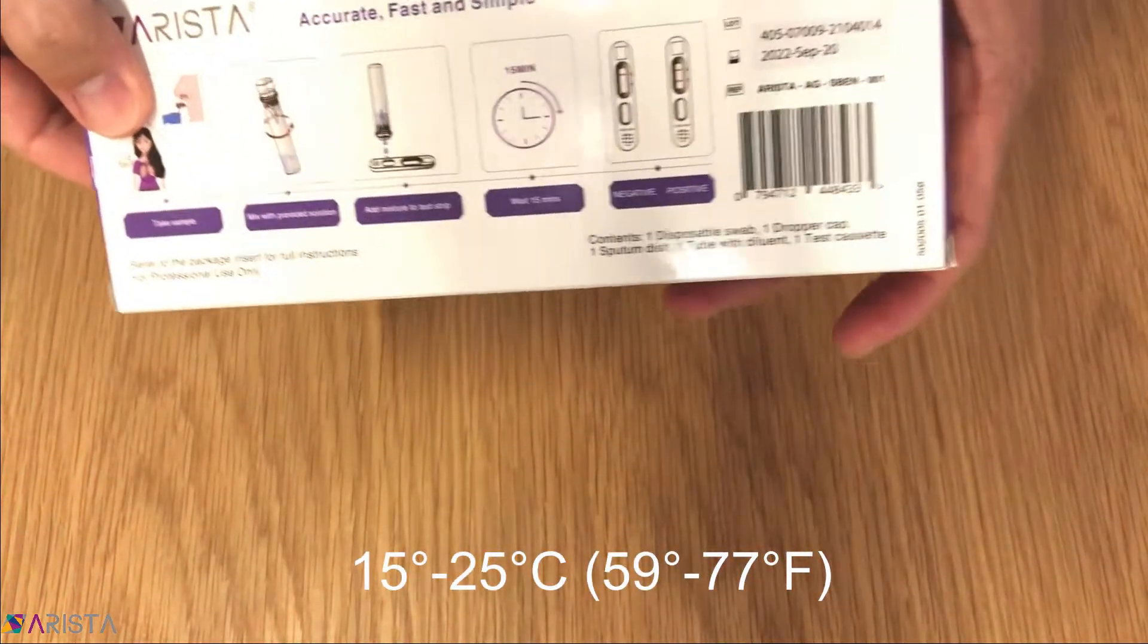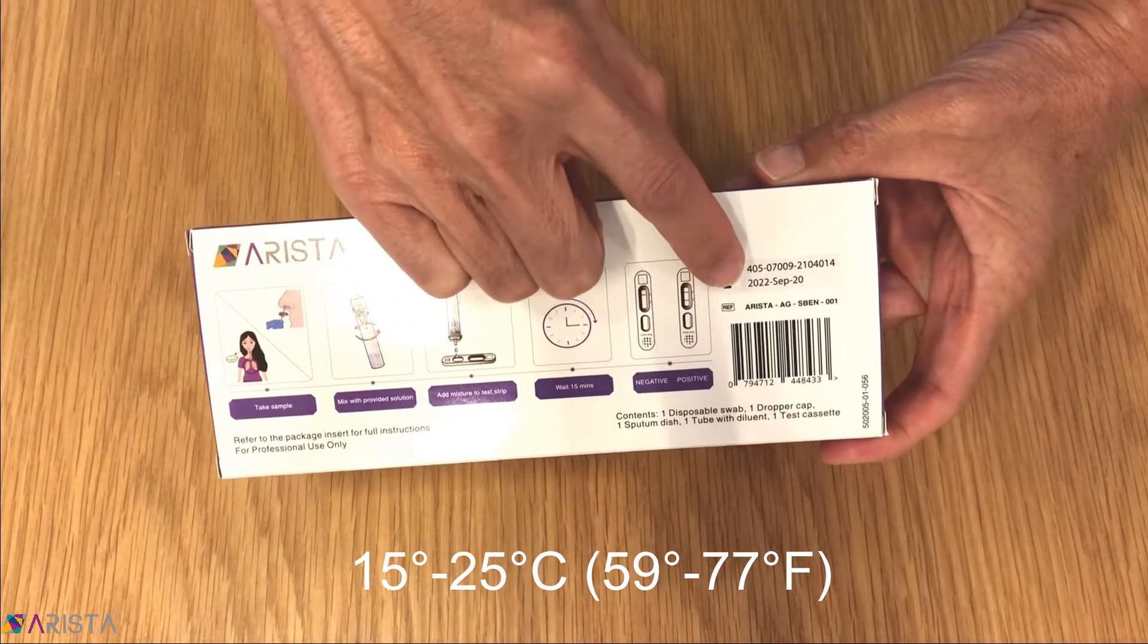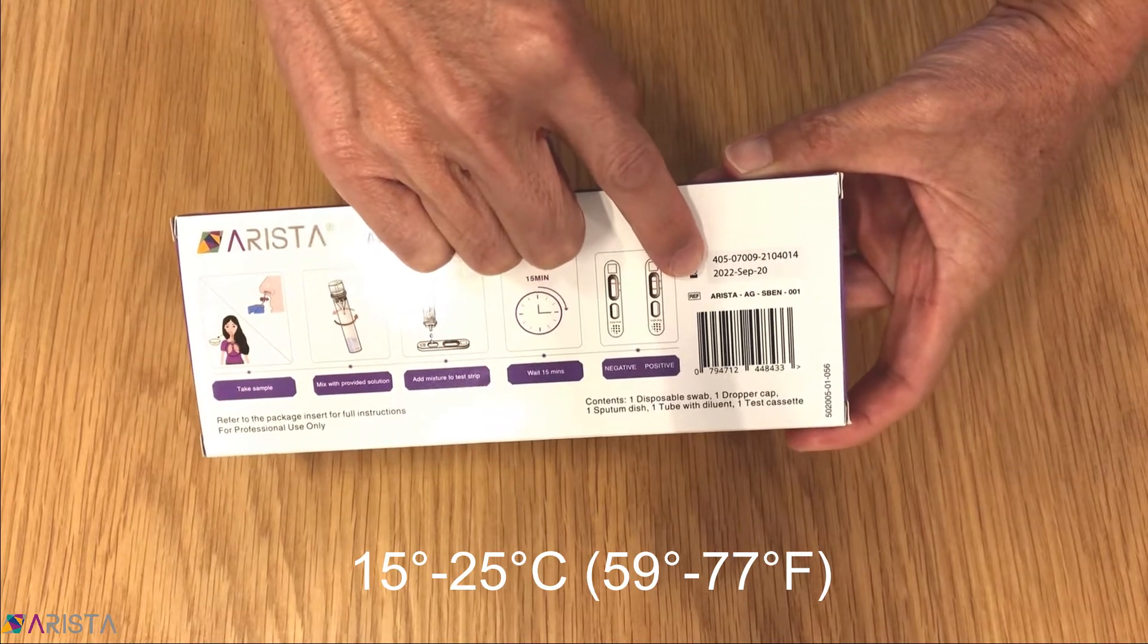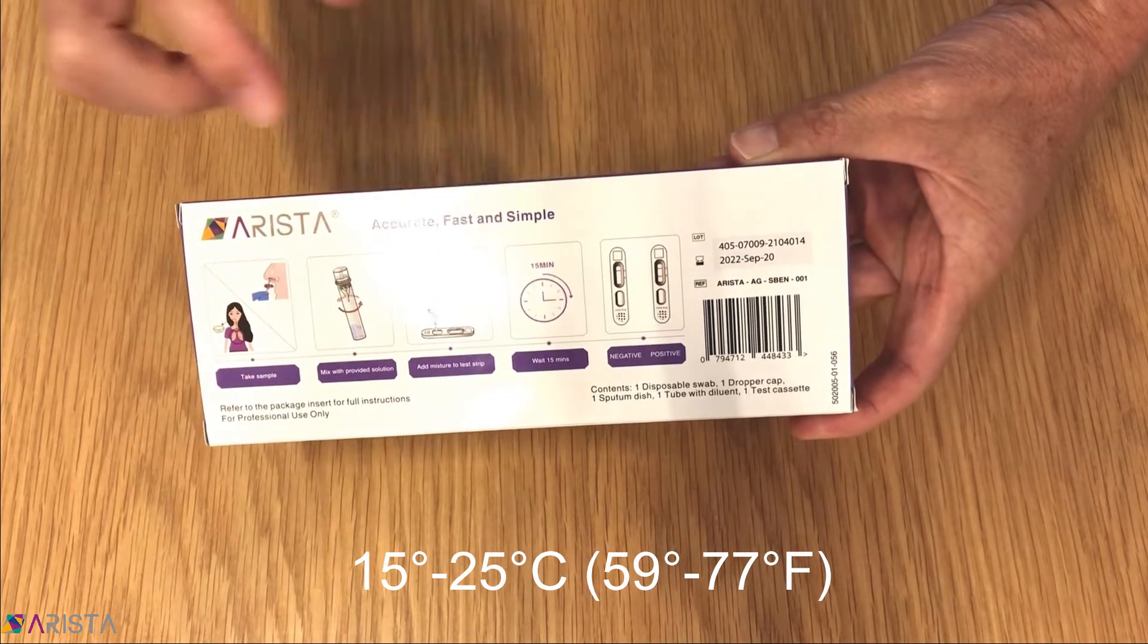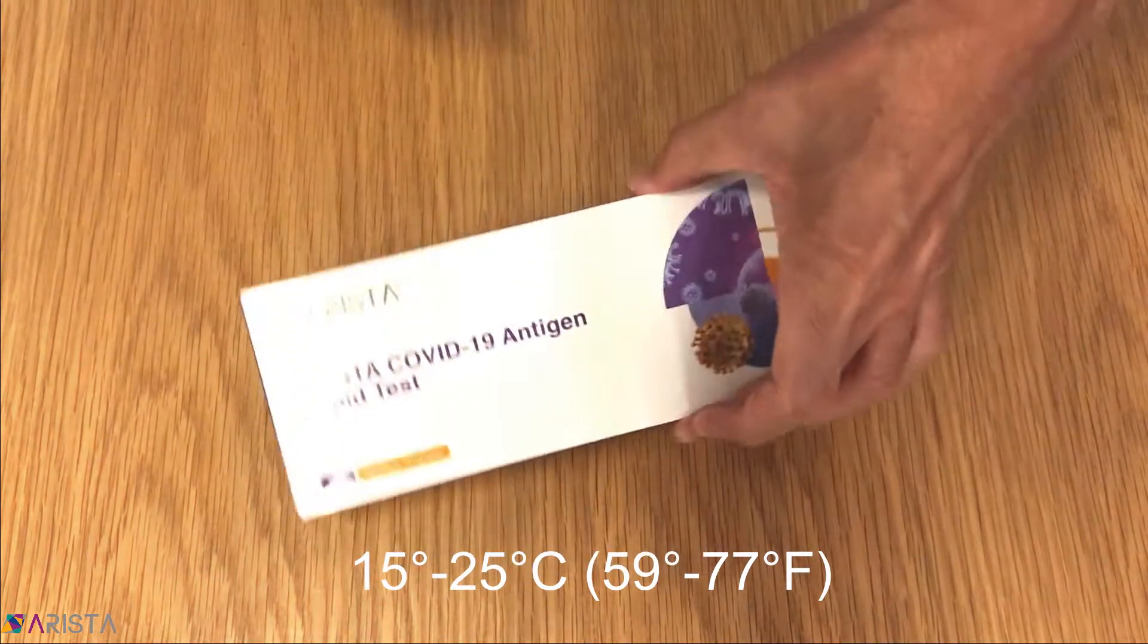Begin by checking the expiry date on the outer package. Do not use the product if the date has passed. Then equilibrate the test kit to room temperature before use. Thoroughly sanitize your workbench and your hands.